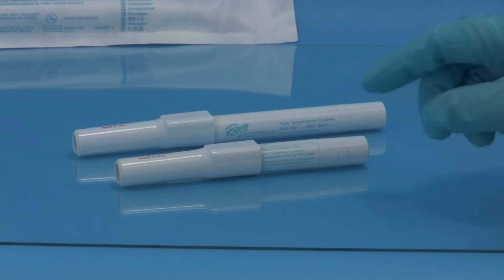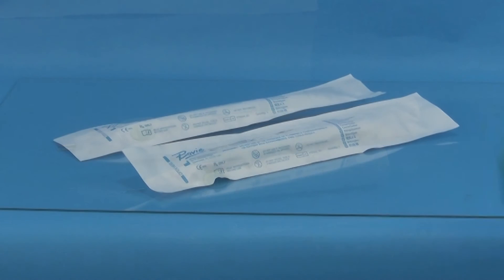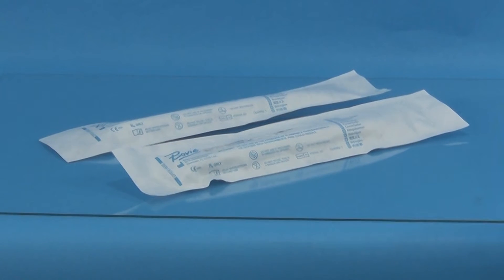Directions. To avoid an undesirable effect, select proper cautery model. The cauteries are packaged individually, sterile.